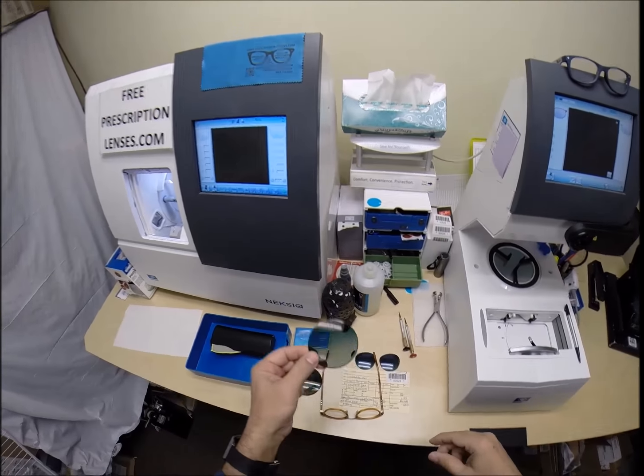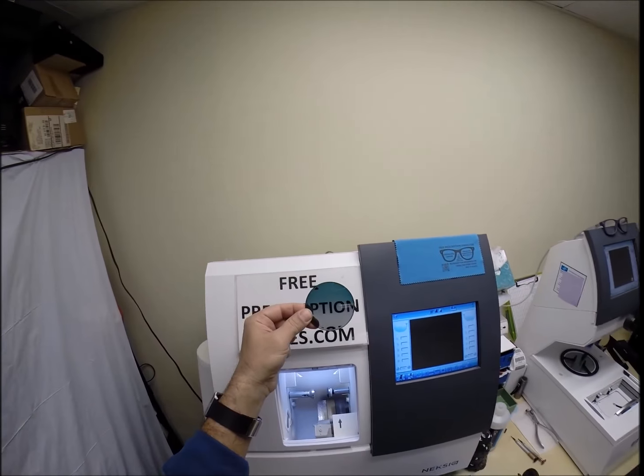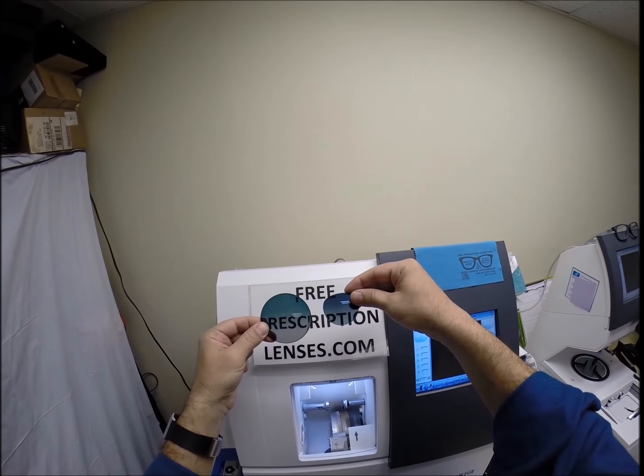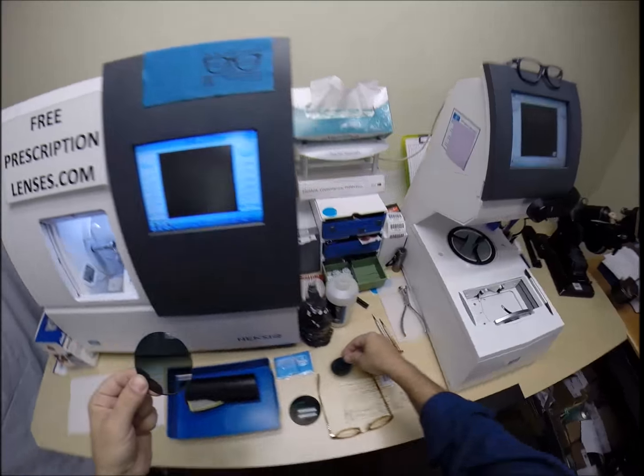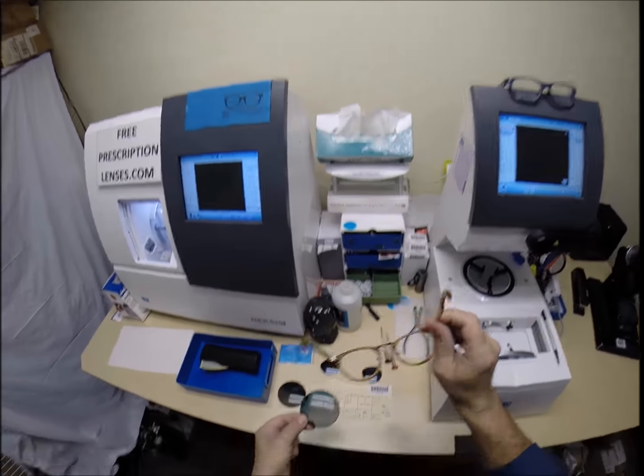This is a polarized gradient emerald blue that is going to match the lenses that I took out of your frame. Very, very close to it. This is a Persol 3108.